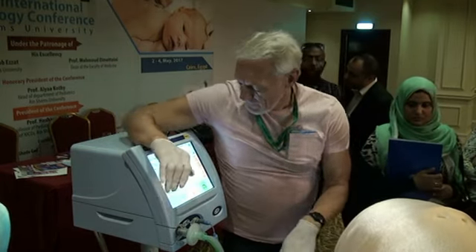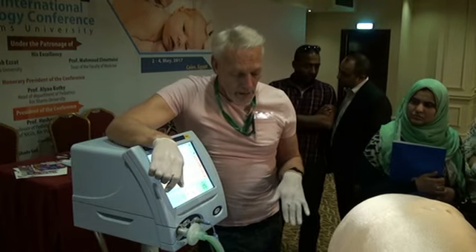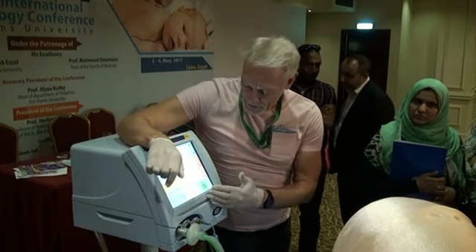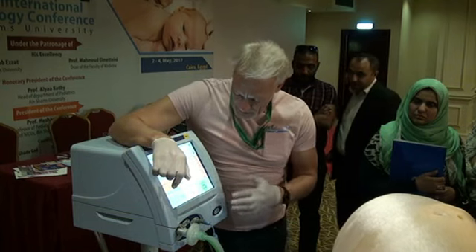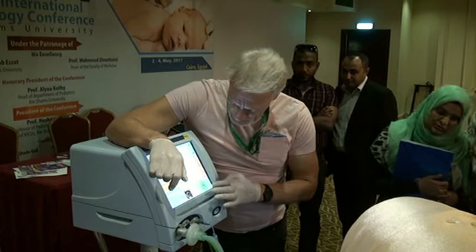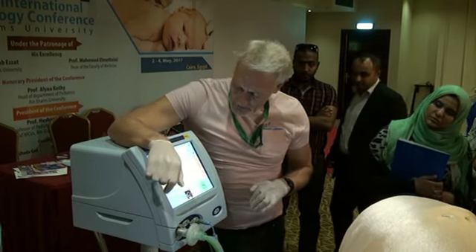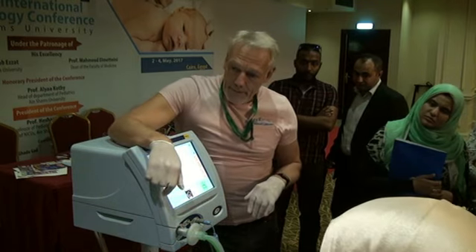And then we try and inflate the lungs again. So in conventional ventilation, we normally regard this as a pretty good way to ventilate. Let me take the baby down to, let's go 22. Let's have 22 on 8 for a minute and see what the lungs look like.